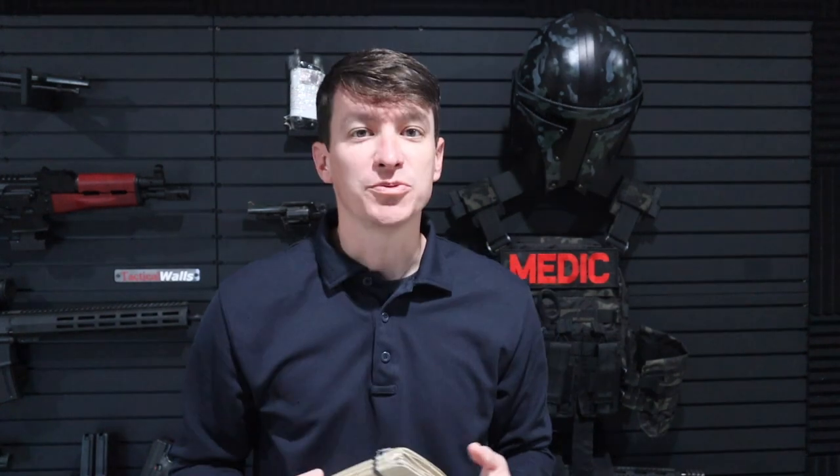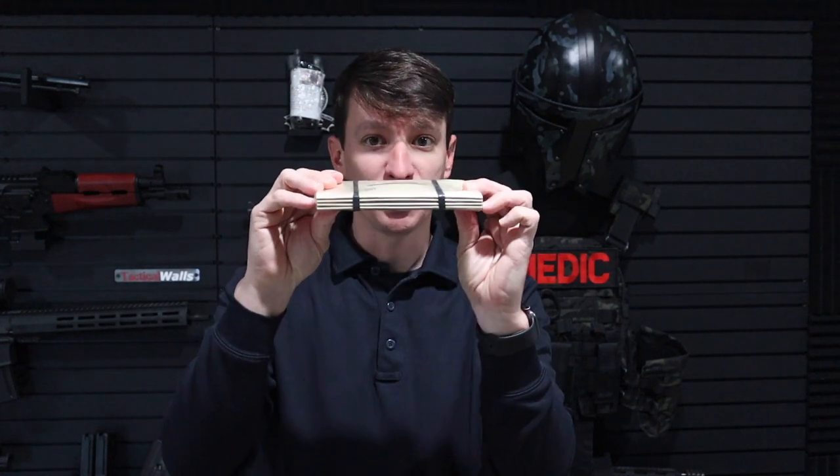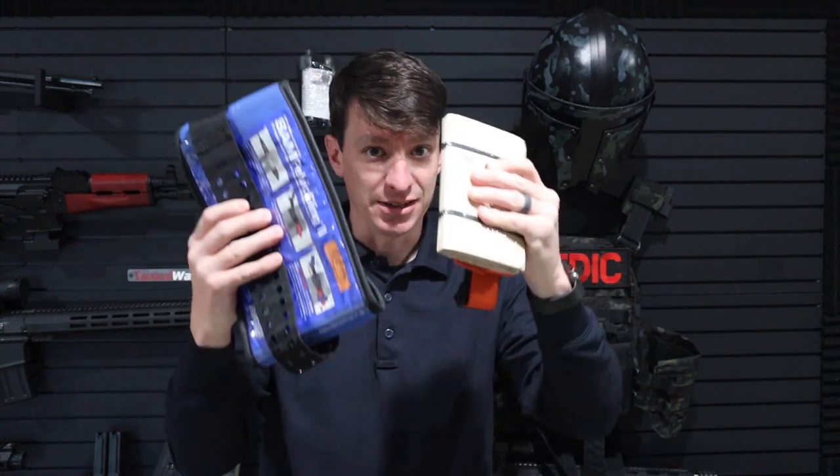There have been some questions on my Instagram page about how big it is. You can see this would definitely fit inside of your IFAK or small pouch or definitely your backpack kit. It's the size of my hand — a lot smaller than your typical aluminum splints or even your pelvic binders that we see traditionally. Just to give you a size comparison, this is the SAM pelvic binder, which my unit carries on our ambulance service. These work — I've used them in the field — but if I could carry the RISE in my search and rescue bag or my SWAT bag, you can see the size difference, so that's why I'm going to make the conversion.